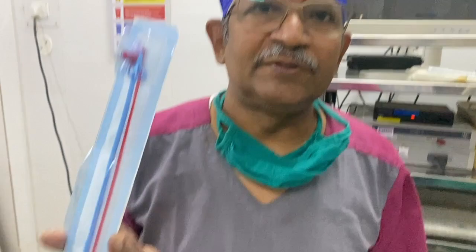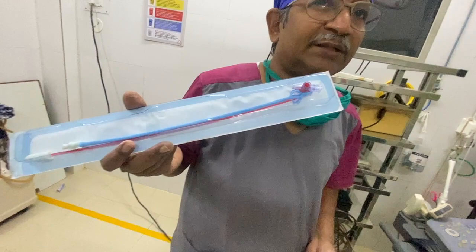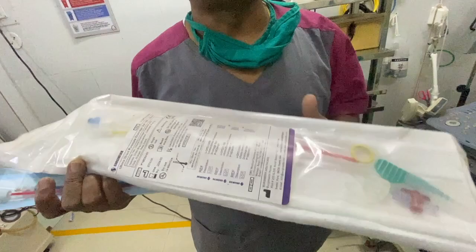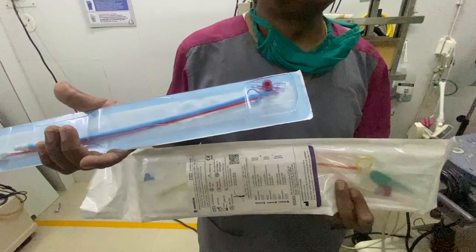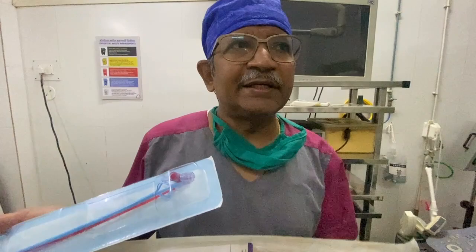The standard open suprapubic cystostomy is not so commonly done nowadays. Another option commonly used in ICU settings is this kind of single-puncture tube — this is a Malecot catheter, which can be passed over a guidewire. This is a pigtail catheter which comes with a needle. These are single-step procedures. There is also a two-step procedure. These are usually done in ICU settings where you do not have much time or equipment, but the retainability of these catheters is an issue.